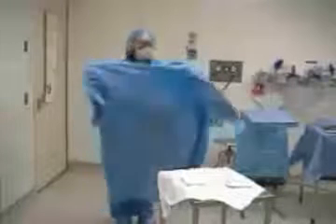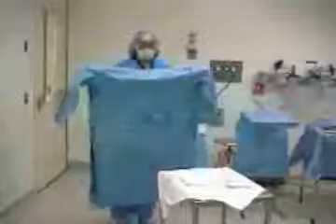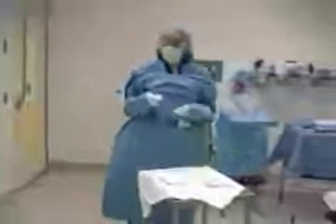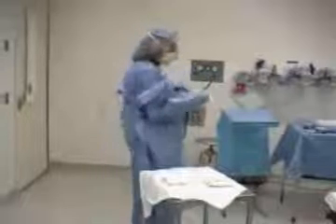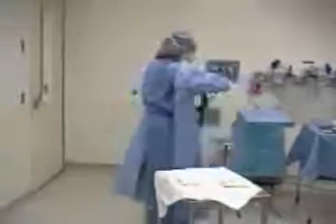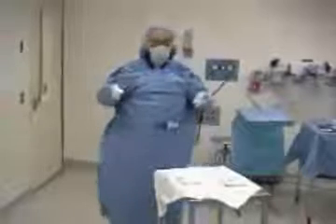You may very gently give it a little push, but do not shake it aggressively. Slide your arms in and keep an eye on where your arms are going. Place it up over your shoulders. There may not be somebody to immediately tie you in, but there are some string ties on the inside of these gowns and someone will come behind you and tie you in.